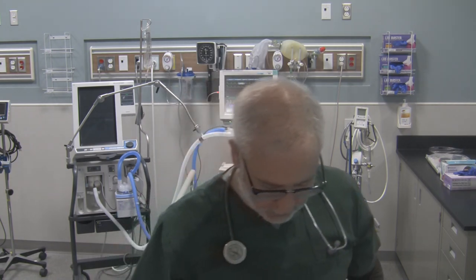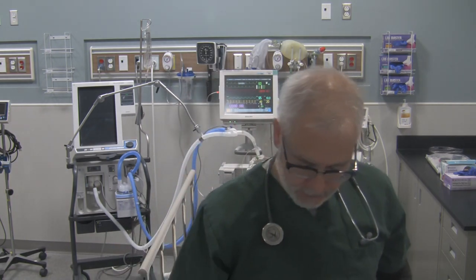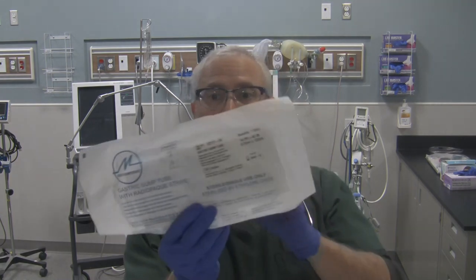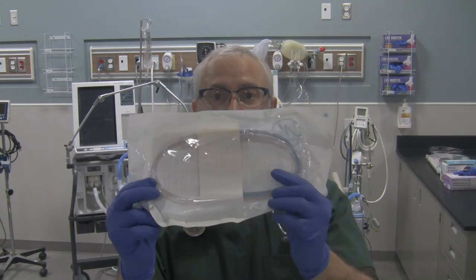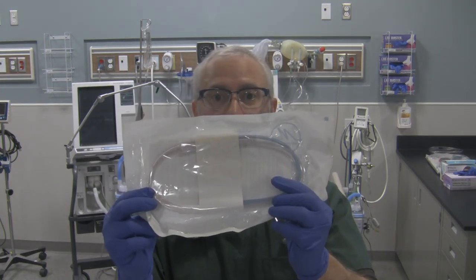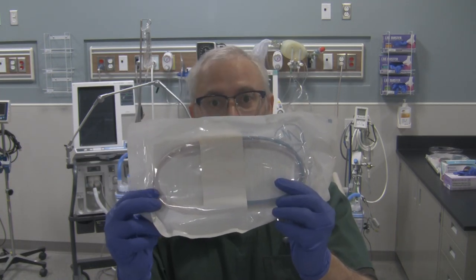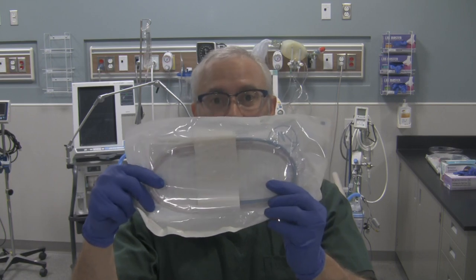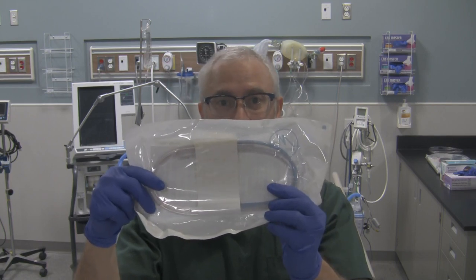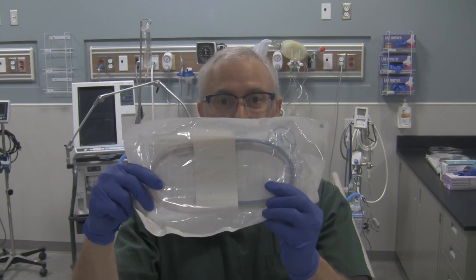I also have a nasogastric tube right over here — but this is not an airway for intubation, it's simply a nasogastric tube, so let's get rid of it.